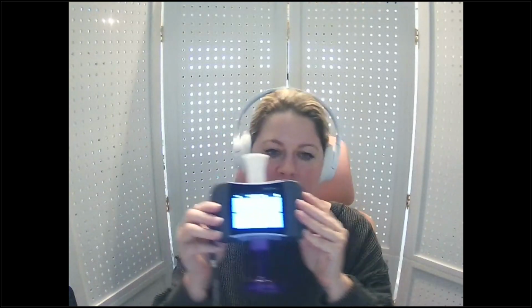And that's the same for your filter connection, so that it just slides all the way on in one direction. Always make sure when you slip that distal filter on that you didn't pop the mouthpiece out the other way, because that again will result in that testing error. So if you're testing with the inline filter, it is on the side away from the patient. All right, so we have all of our supplies, we're ready to go.